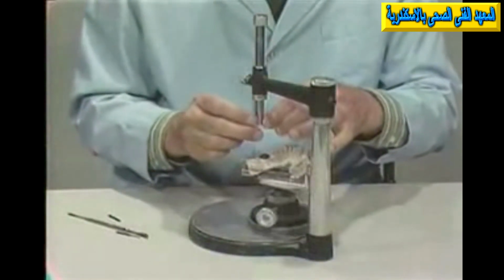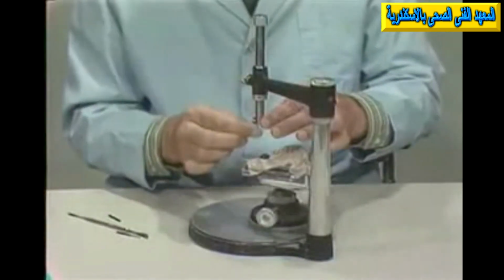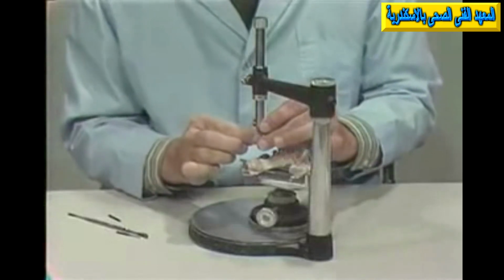Notice the rather unfavorable bulge here high. If we had something like this, it should be removed and recontoured, and then rechecked, so that we have an area which gives us a low height of contour, which is appropriate for our cast clasp. Now, in this manner, we can contour crowns just exactly the way we want them in accordance with our requirements as far as partial denture goes. And this is a very handy gadget for knowing exactly the proper amount of contour and the proper amount of retention that we desire.